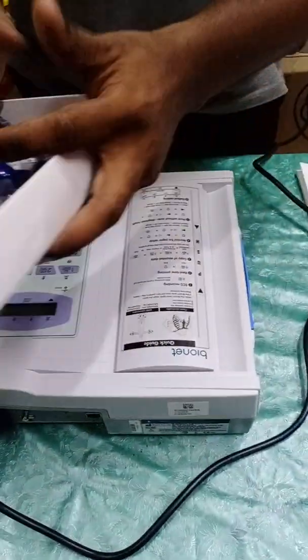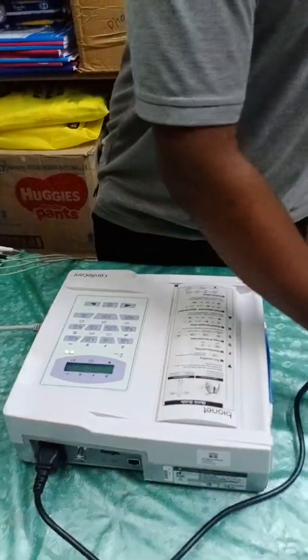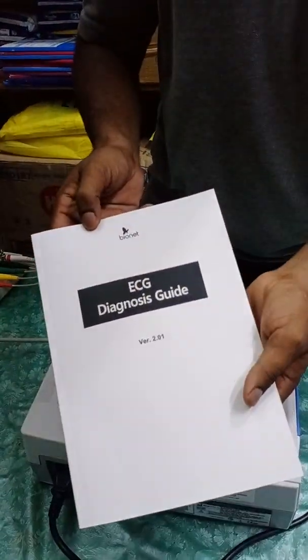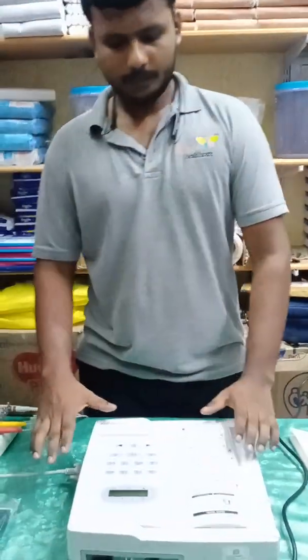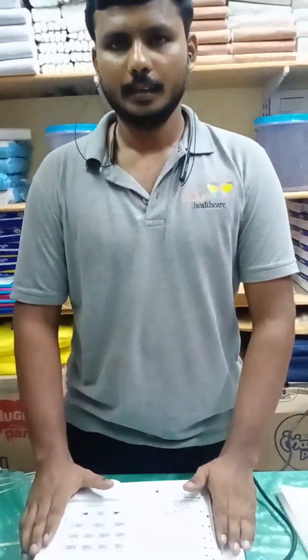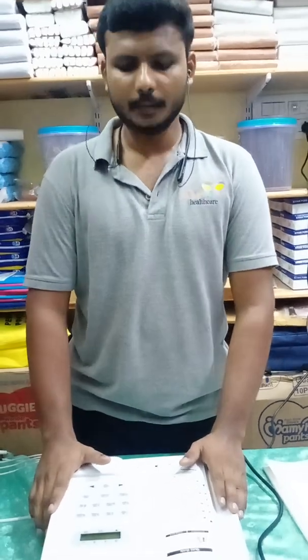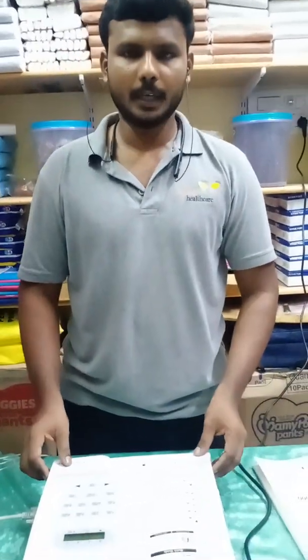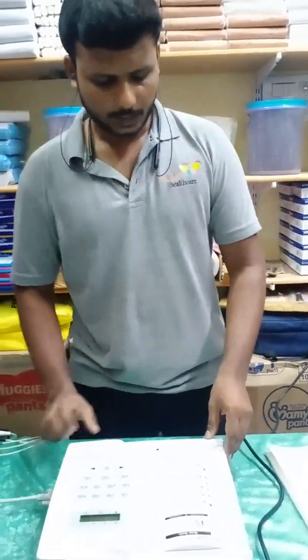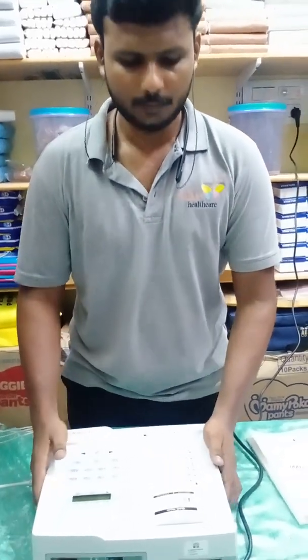Here we have the suction electrodes, and these are the limb electrodes. The machine comes with a Cardio Care operating manual and ECG diagnosis guide from BioNet. In short, this machine is a well-regarded product in the market with a finely fabricated ABS plastic body, and it uses ECG roll paper.